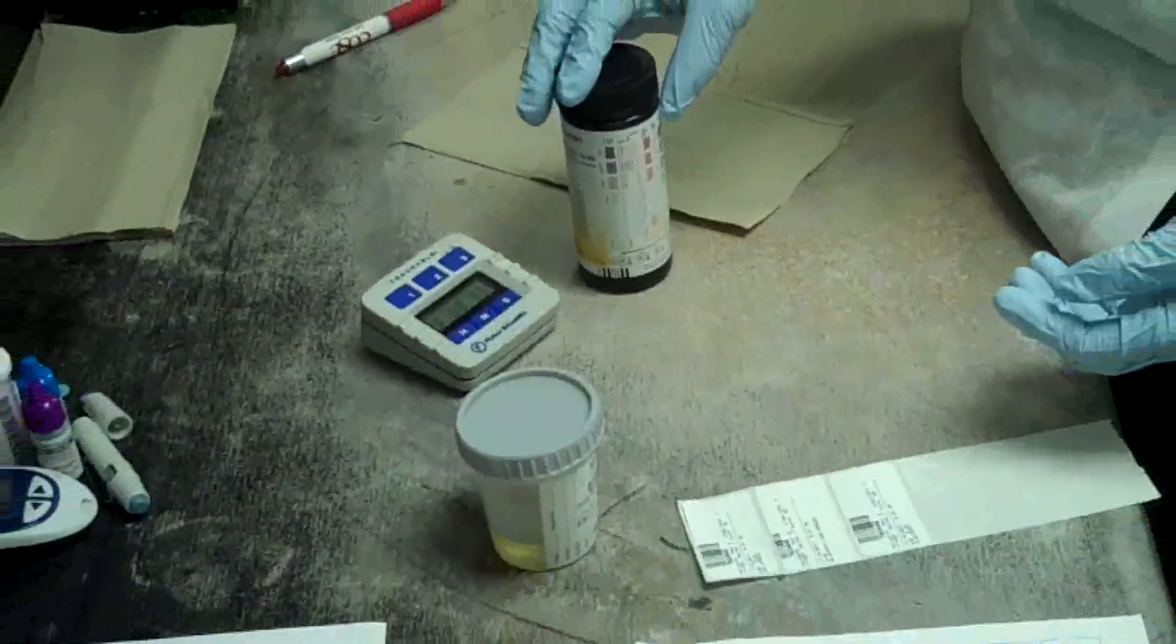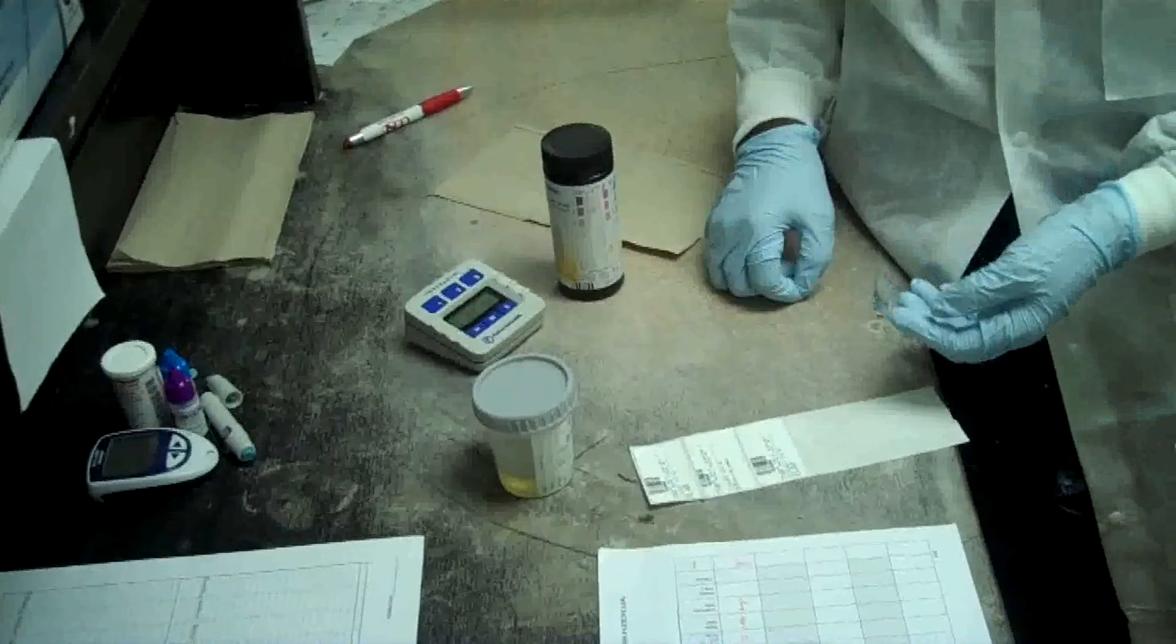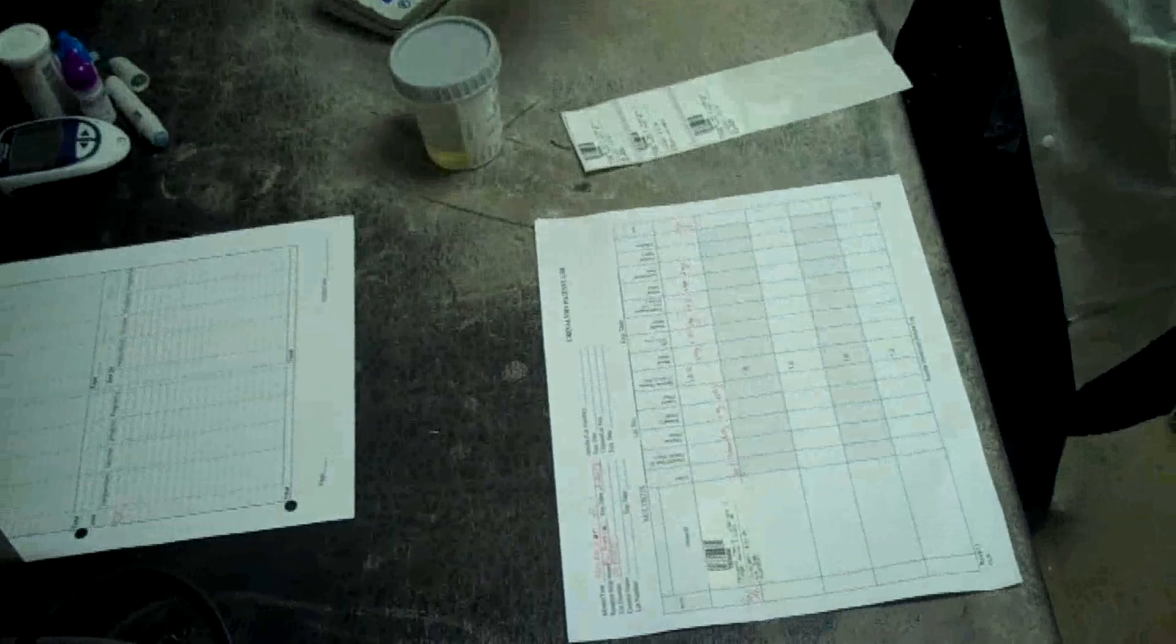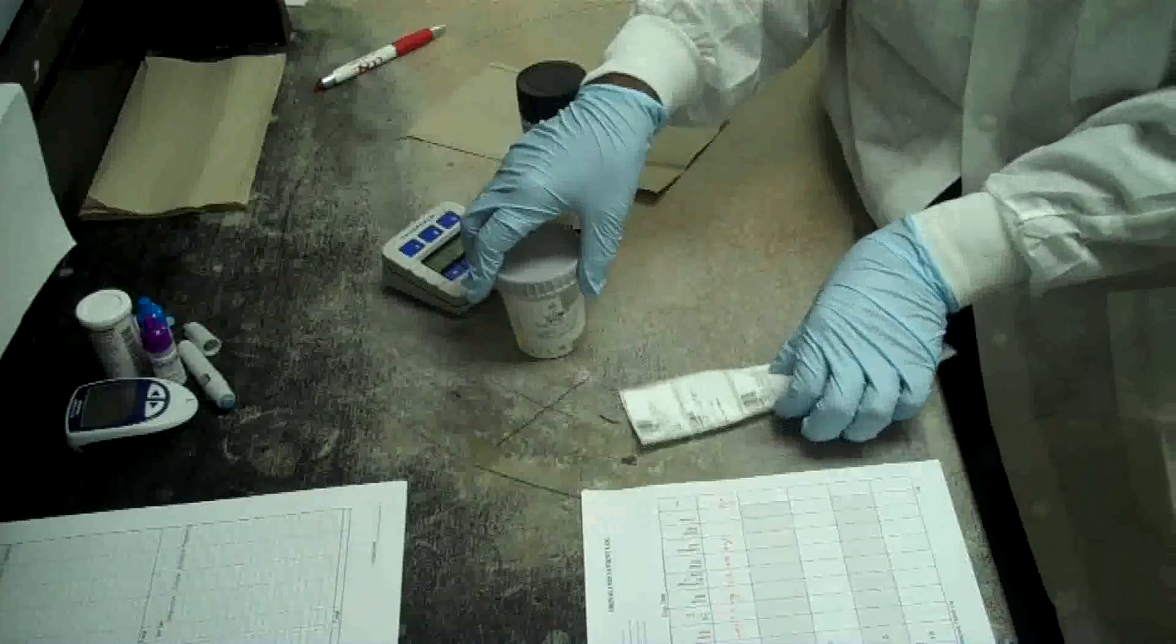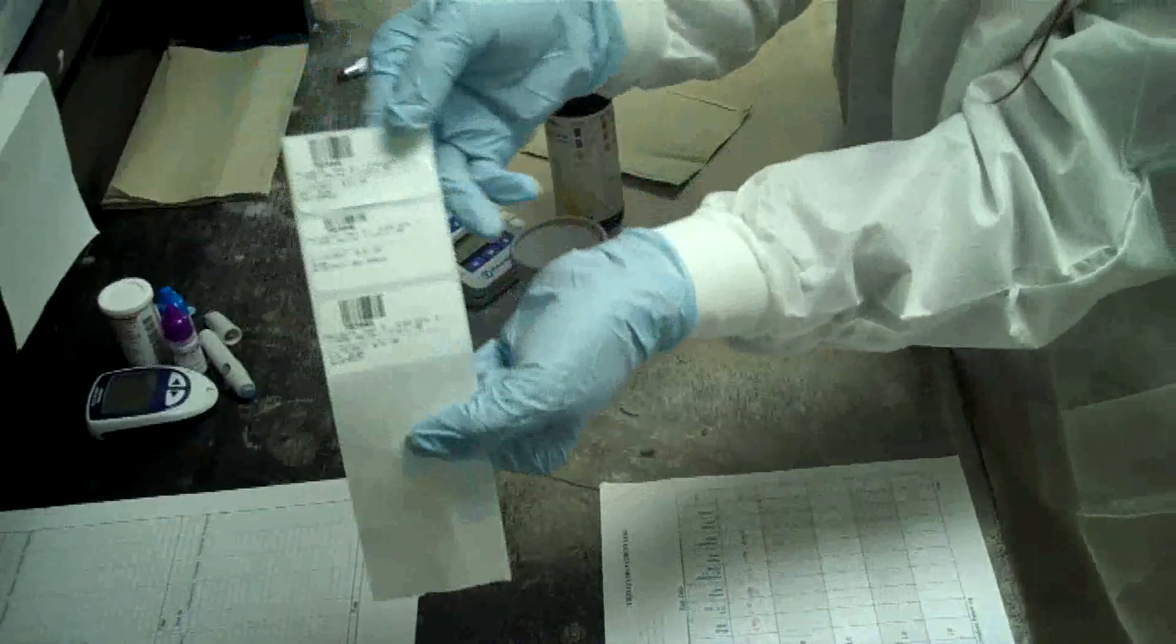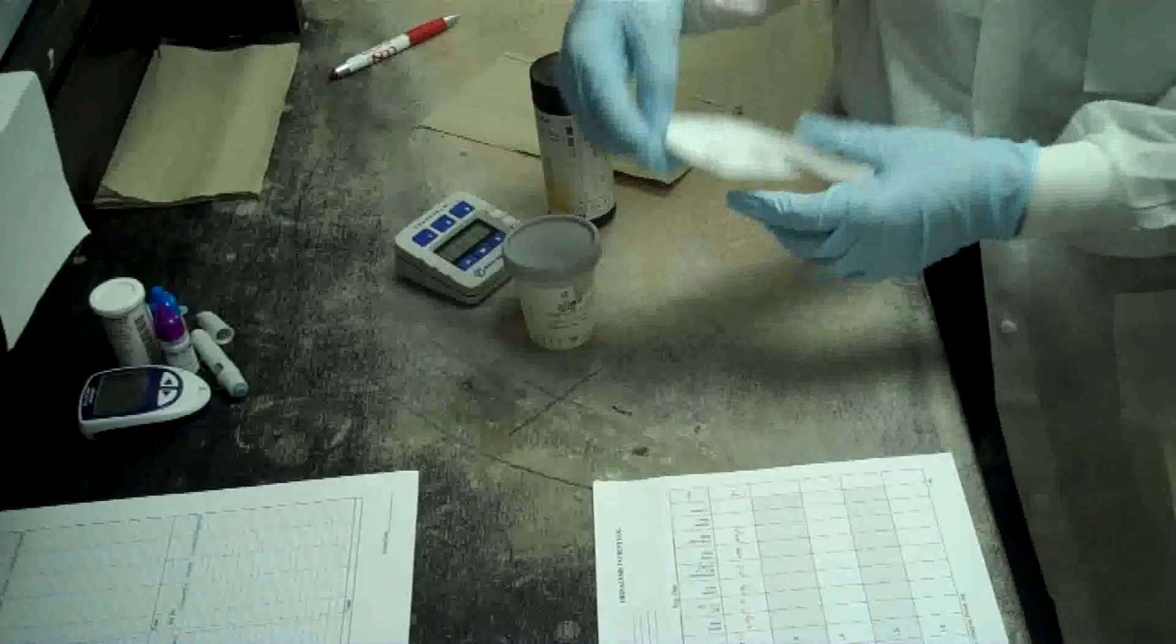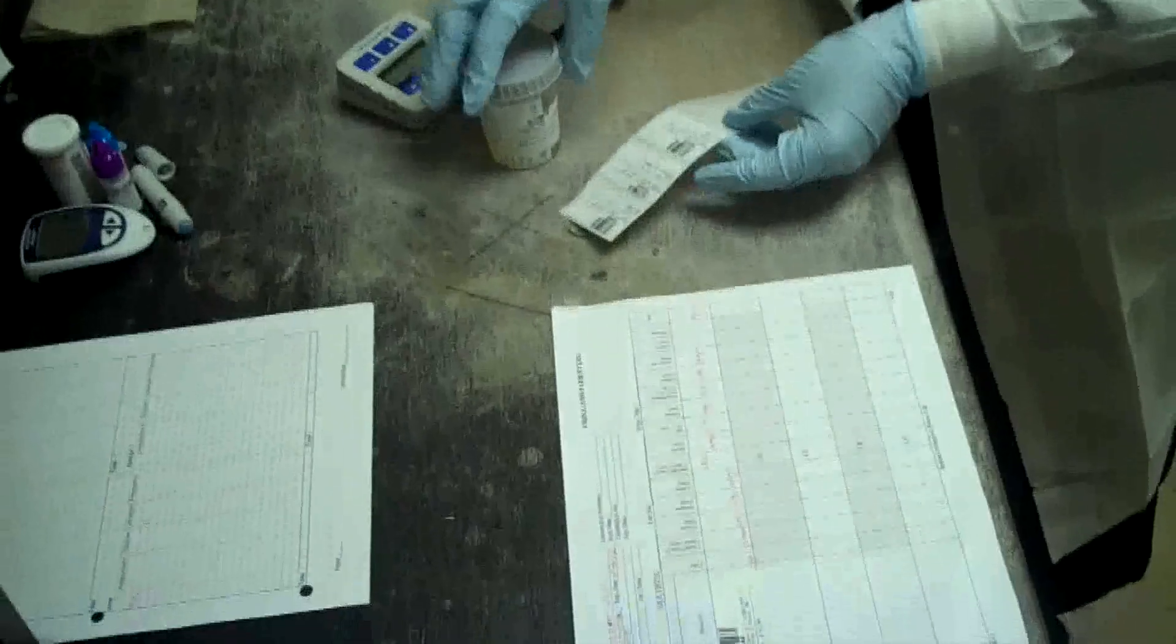When a urine dipstick is requested from the provider, receive the urine specimen along with the patient labels. Assure that you label the patient and put the patient label on your urinalysis patient log.